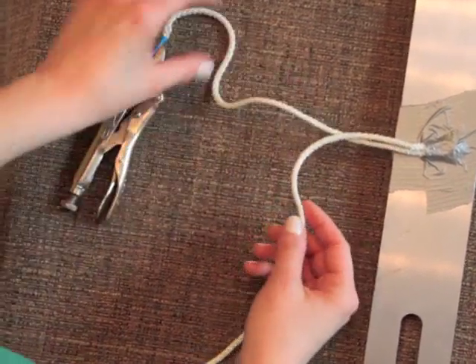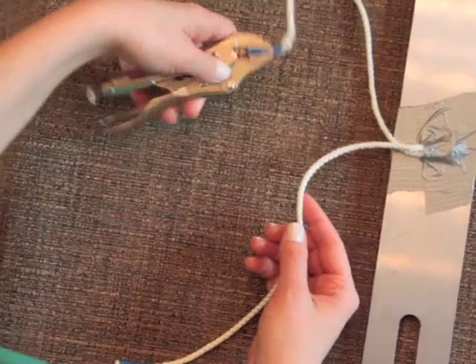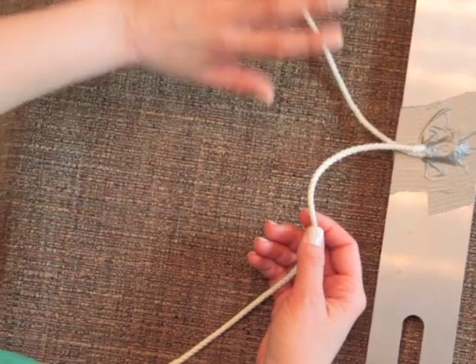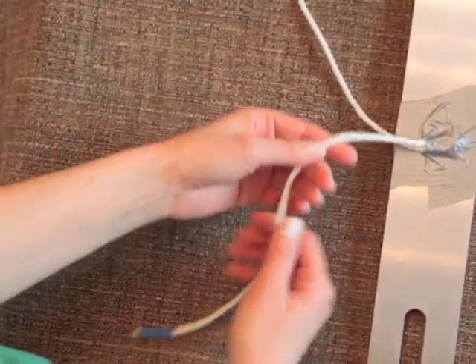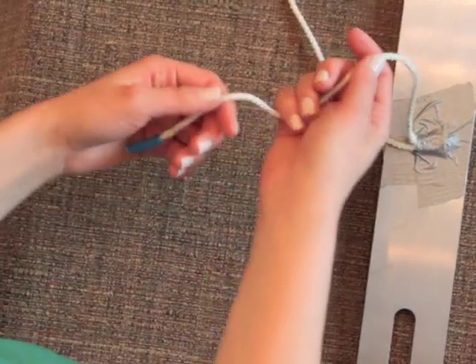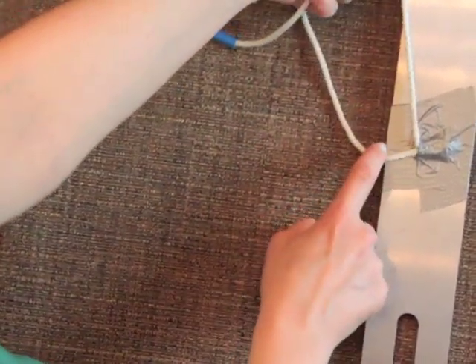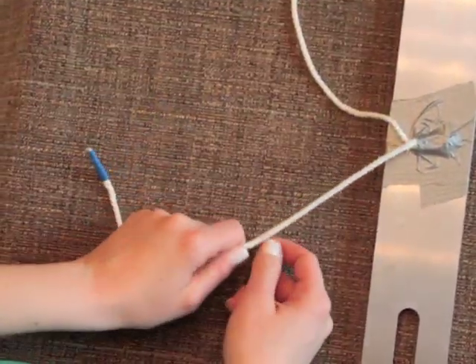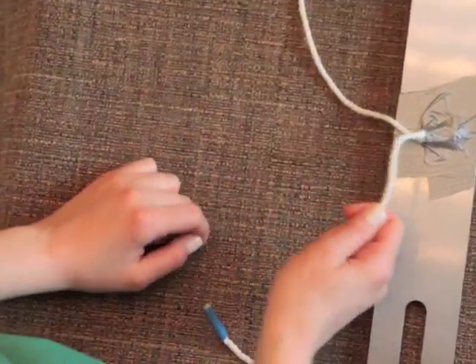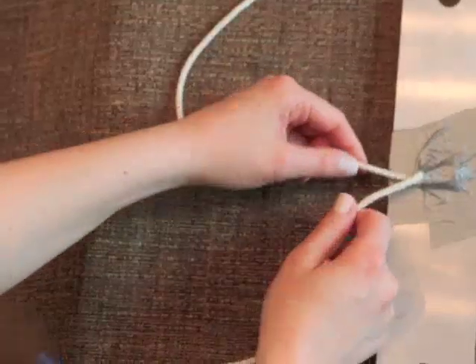So let's get started. With the two-handed knot tie, you're going to have your needle driver secured on the left, sort of the farthest from you. And then in your right hand, closest to you, is the free end that, if you see right here, this is open, and I'm crossing it over on top. See that? So I'm crossing it on top into my right hand, needle driver in my left hand. Okay, so gun hand C.